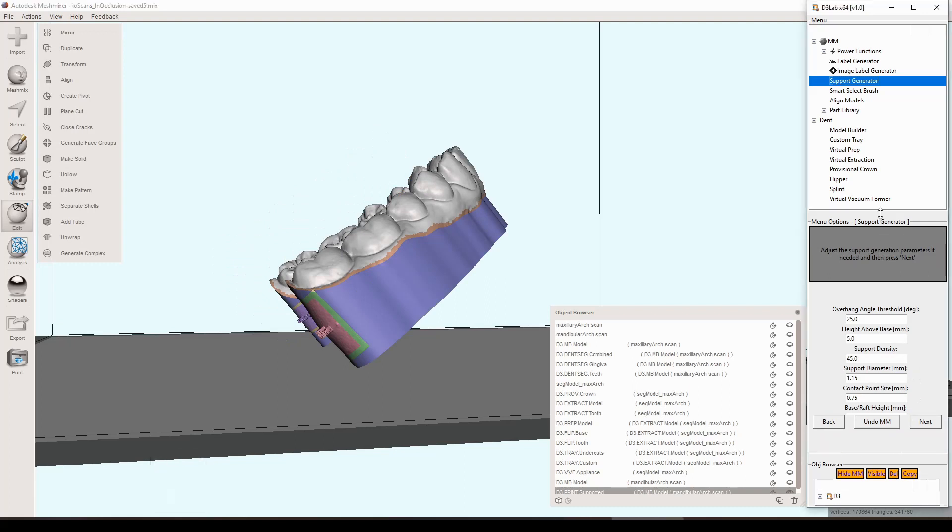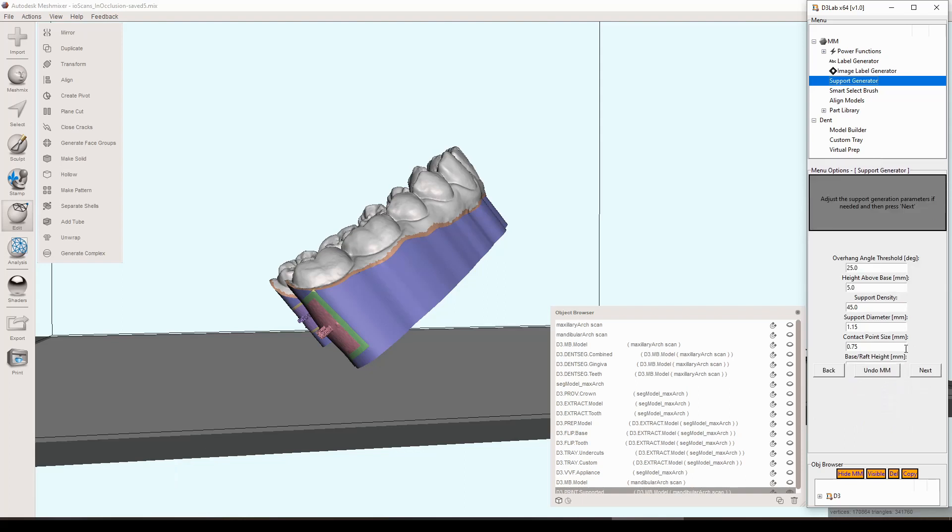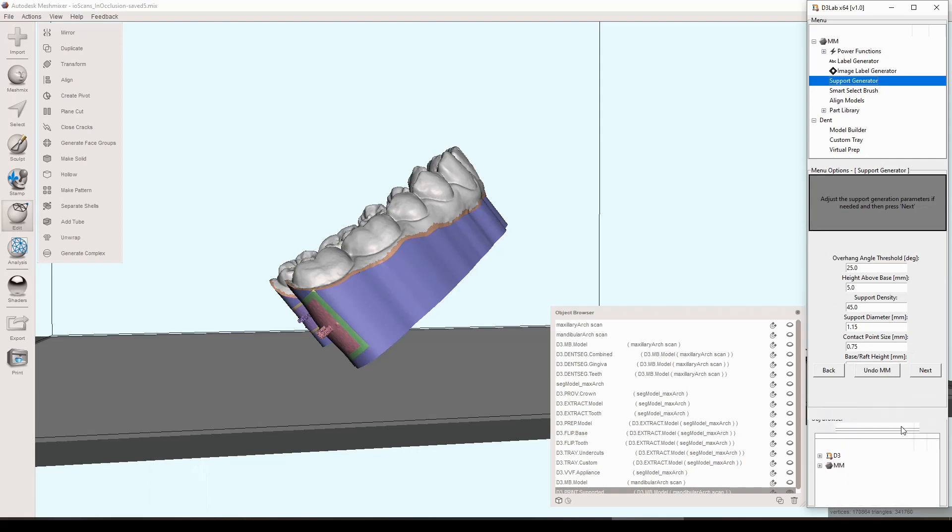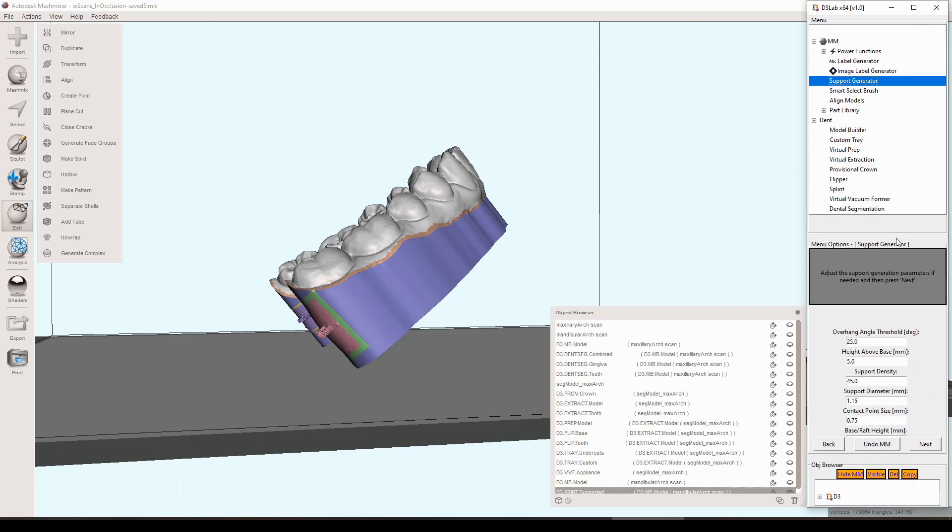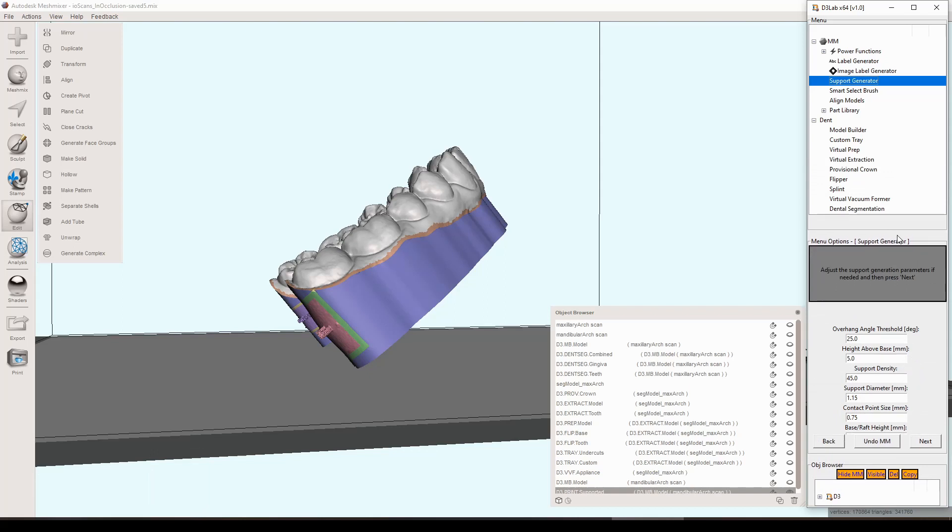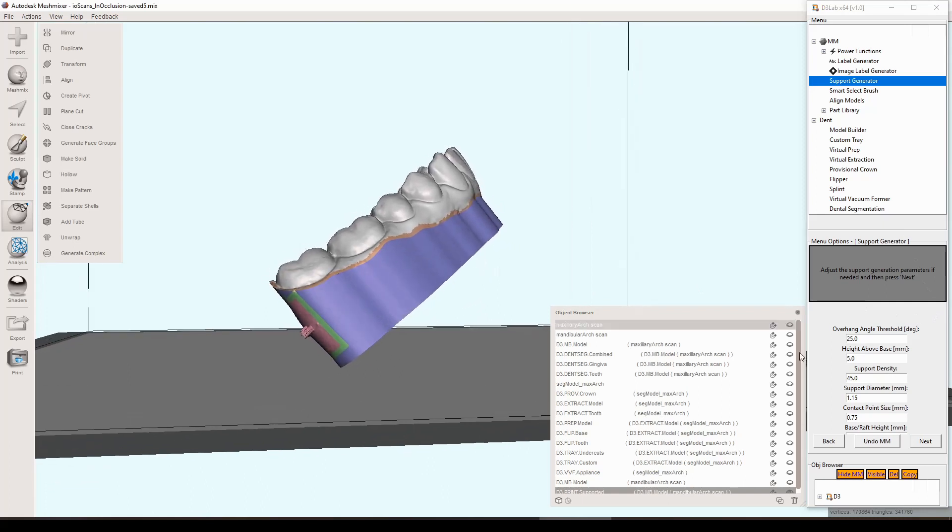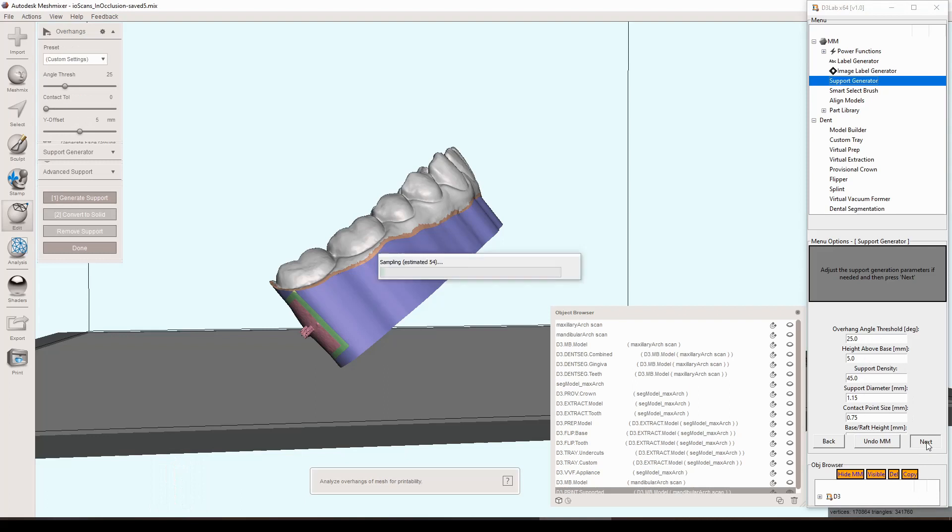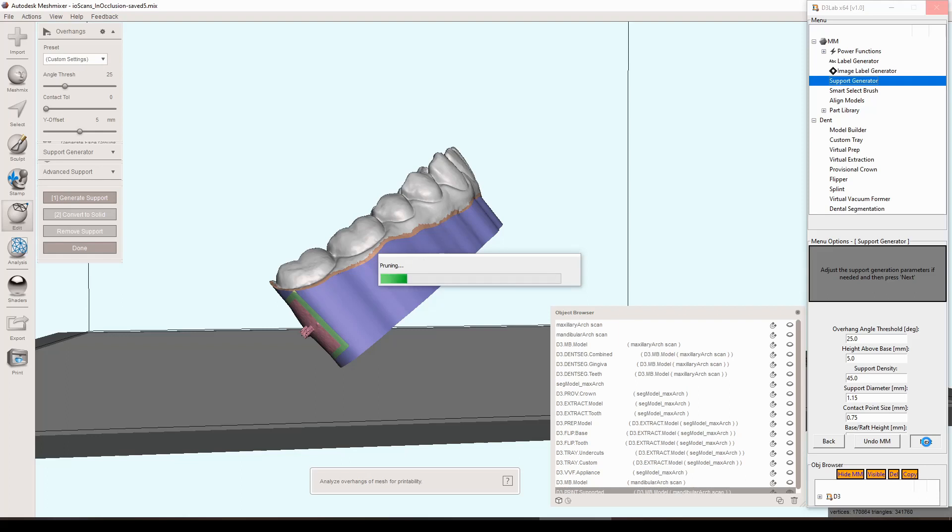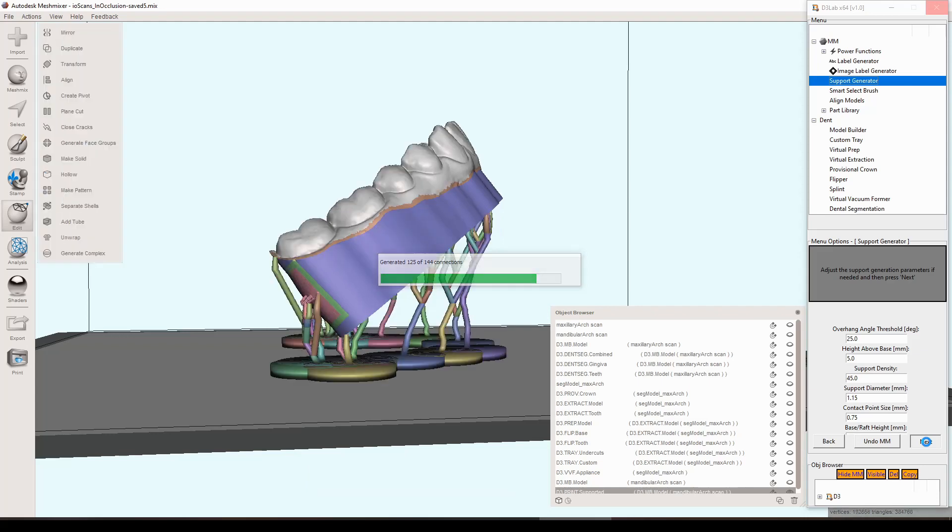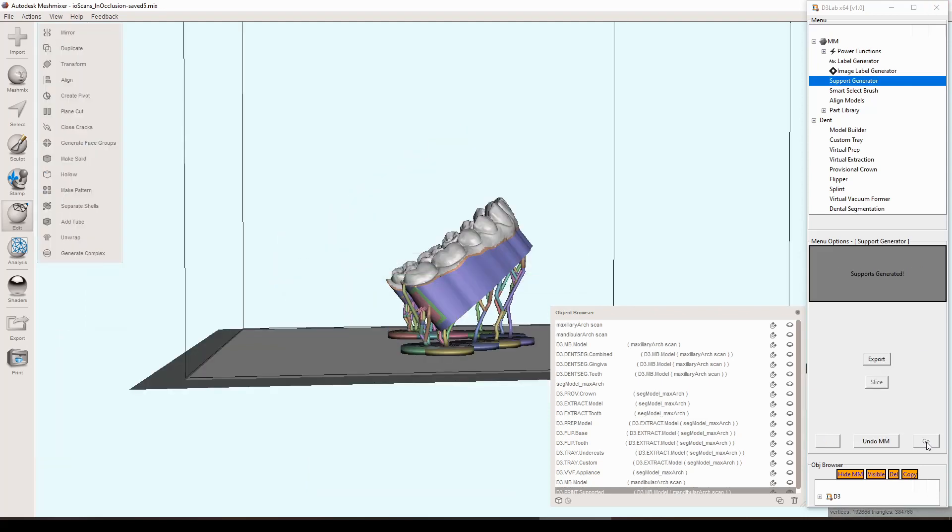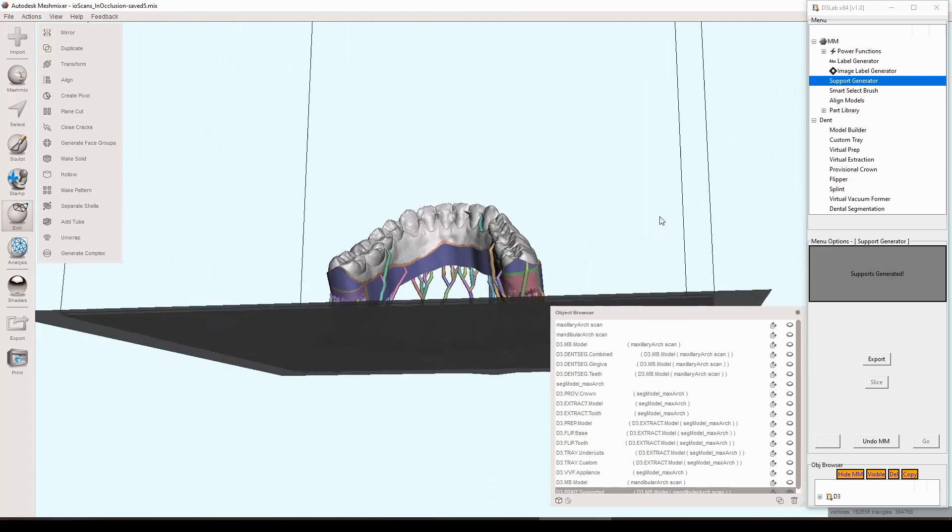You hit next to actually start the tool up here, and this is just where you input any of the parameters that you want to change from the default. I'm kind of noticing that one at the very bottom parameter here I can't really see that well, so it's something I'm going to have to go back in and change the spacing on. But you can still kind of click in that box and change it if you really wanted to, so you can access it but I will go back and change that spacing. If you go through the manual support generating tool through mesh mixer itself, I mean there's like 40 or 50 different options, so I narrowed it down to just like these four or five or six key parameters and you can change those as you'd like and it'll generate what we need for 3D printing with the majority of our resin printers.